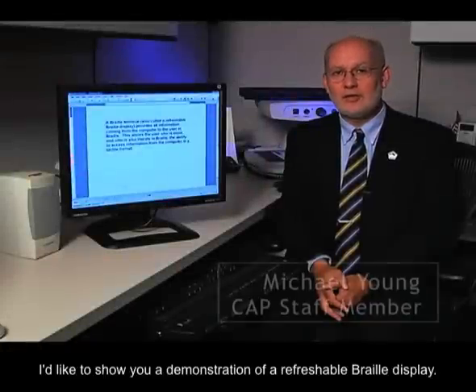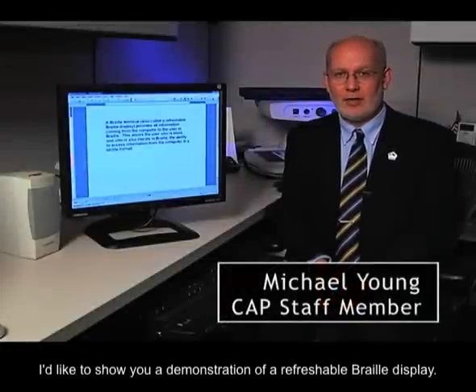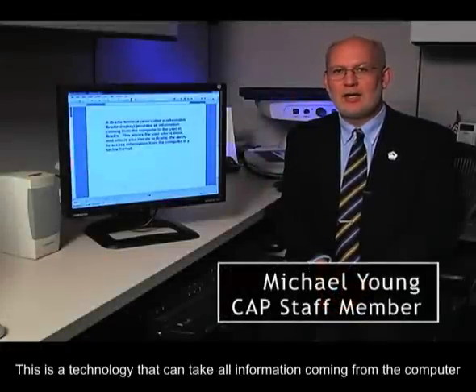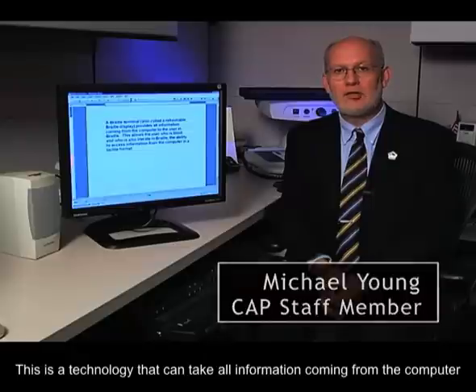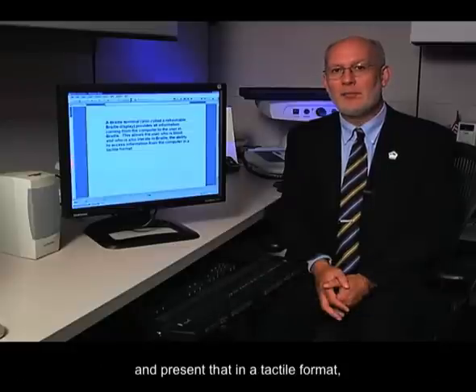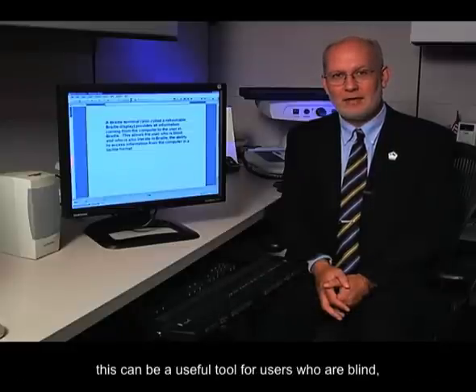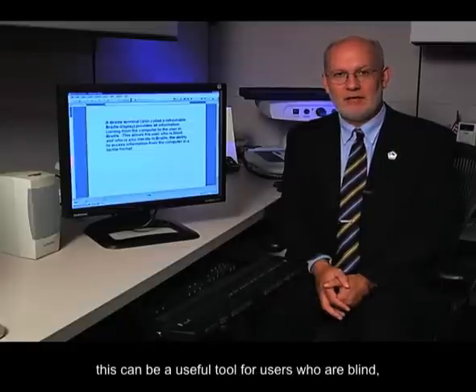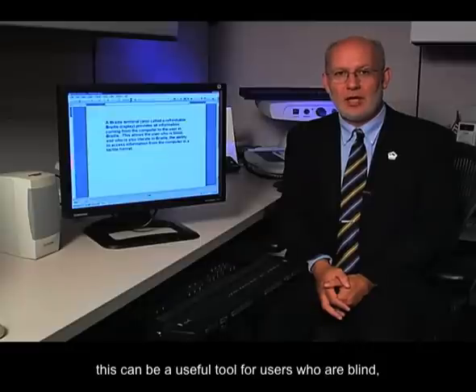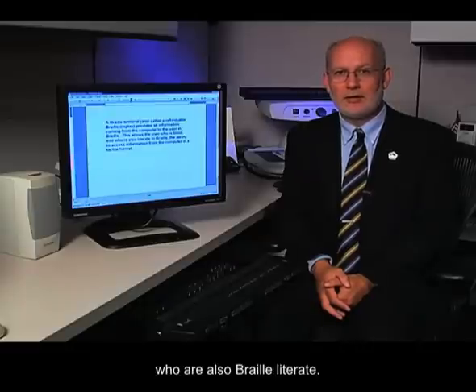I'd like to show you a demonstration of a refreshable Braille display. This is a technology that can take all information coming from the computer and present that in a tactile format. This can be a very useful tool for users who are blind who are also Braille literate.